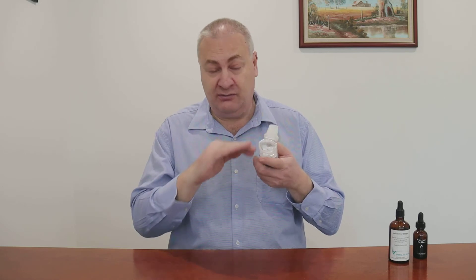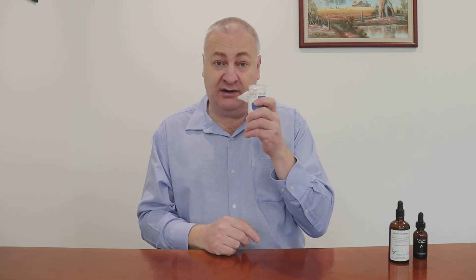If you have something going on that's purely in your nose area, then you may want to nebulize just by breathing in through your nose. Don't hold the nebulizer tilted because then the liquid falls away from where the intake is — you still have to keep it reasonably upright. Hold it under your nose and breathe in and out through your nose.